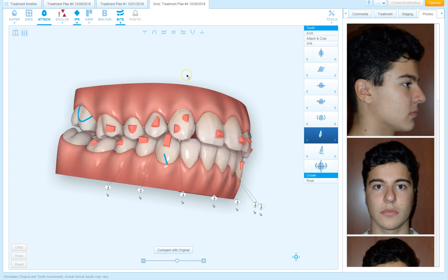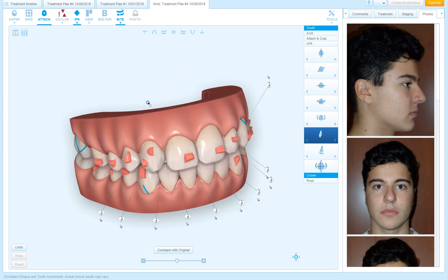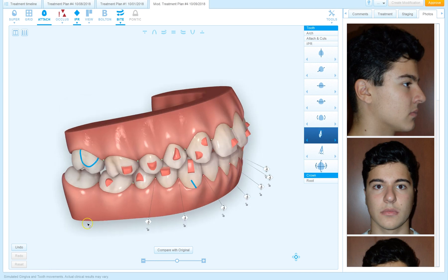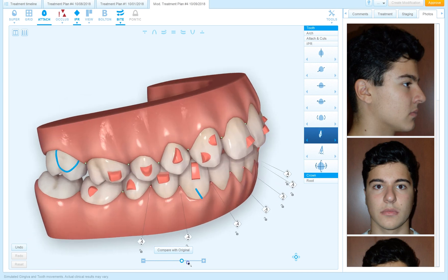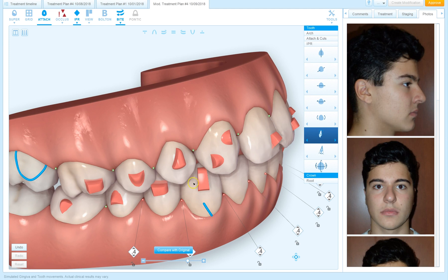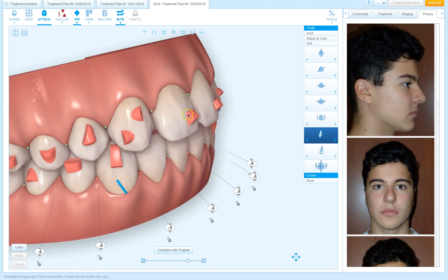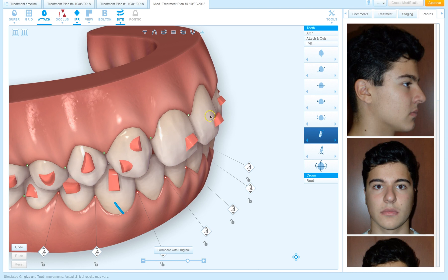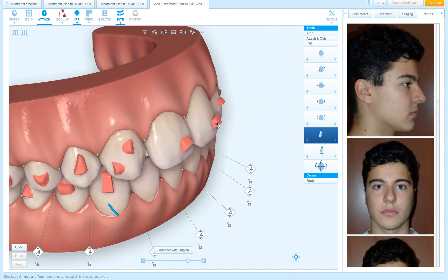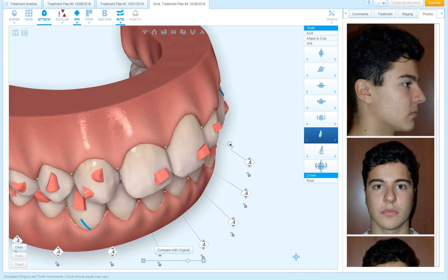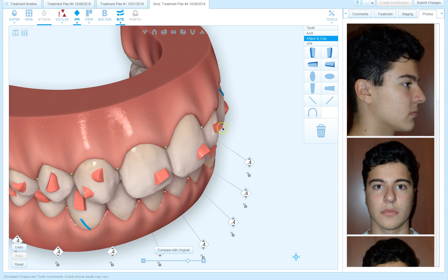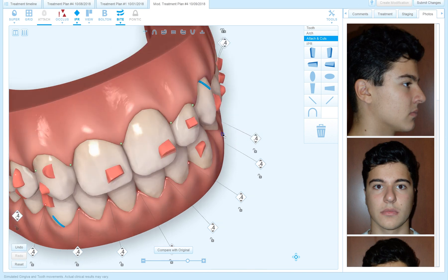This I make a contrast to, for example, if I look at the attachments on the upper centrals. You notice that the one on the upper right central is the way I like to use it, which is horizontal bevel to the gingival, gingival flush to the tooth surface. But the attachment on the upper left central is not horizontal bevel gingival flush to the tooth surface, and neither is the one on the lateral. So I'm going to take both of those attachments and bevel them so they're beveled gingival flush to the tooth surface, because that's the way I like to use my attachments.